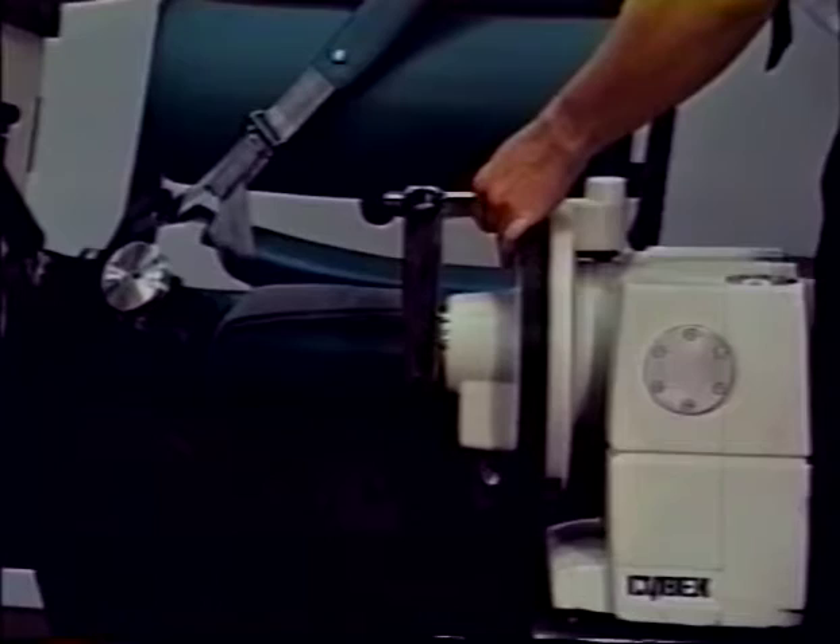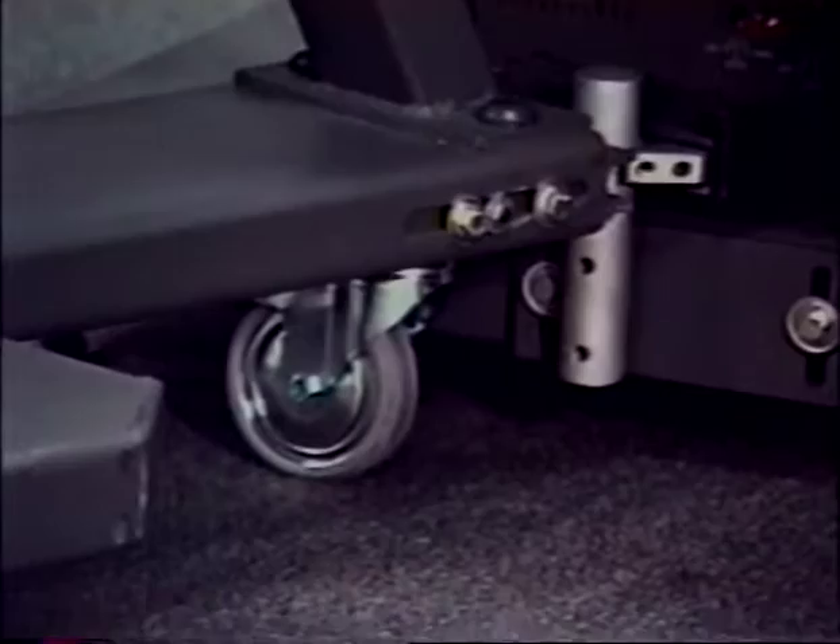Return the dynamometer speed to zero degrees per second. With a 9/16-inch wrench, loosen the four hex head screws at the bottom along the sides to the rear of the TEF modular component.